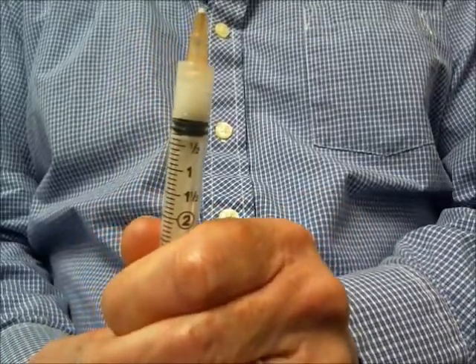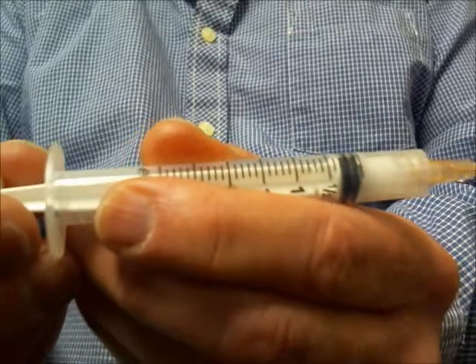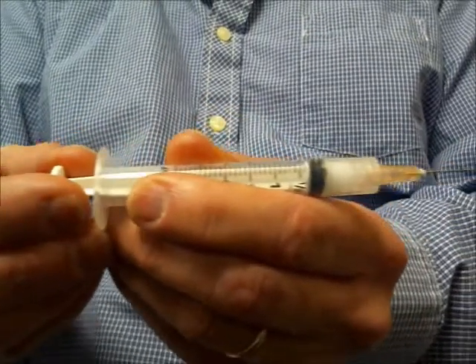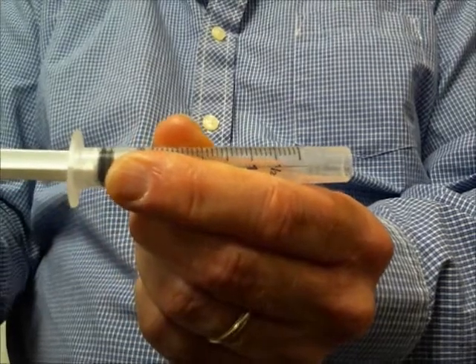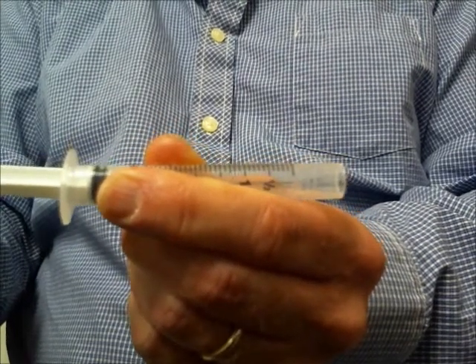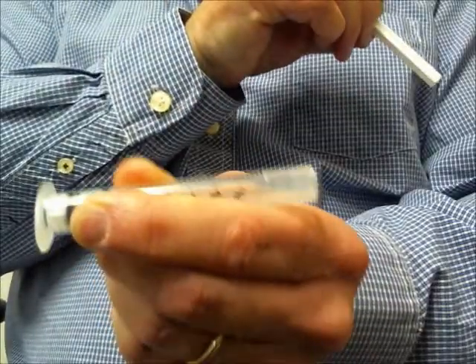At this point, when I pull the plunger back again, you are going to watch the entire needle assembly pull back into the barrel. That is what makes it safe. Now, we snap the plunger off at a 90 degree angle, and we have got a safe, finished device.